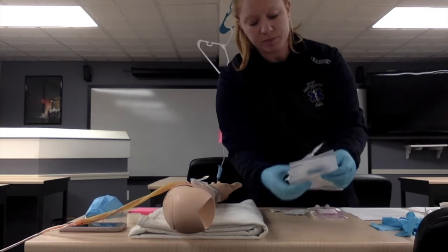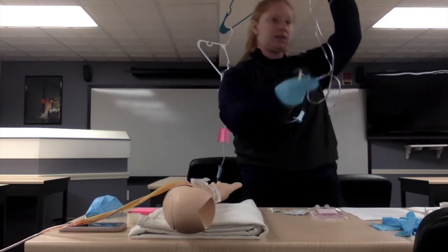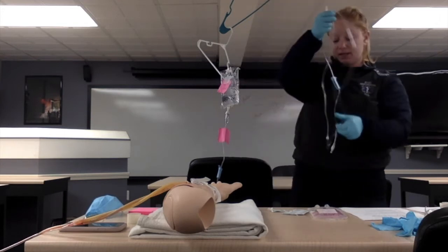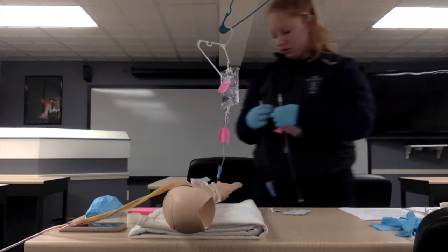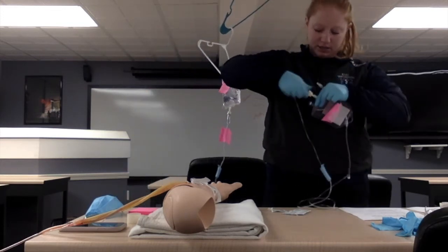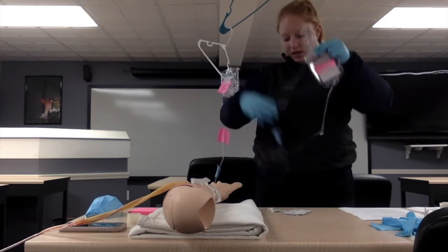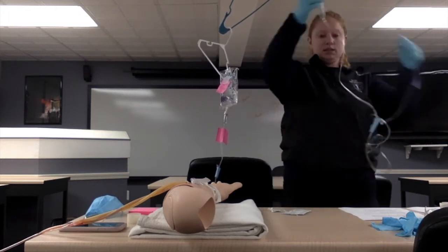So we're going to get our drip set, which is the 10. Again, make sure you're keeping all the covers on when you need to. You want to keep this as sterile as possible. Before all of this, like I said, we have proper hand hygiene. So as we set all this up, we just peel that back. Again, take the cover off of the spike. Make sure you're not touching anything. You're going to make sure that's in. You want to make sure that the roller is shut off before you do any of that. Make sure that this isn't all twisted.